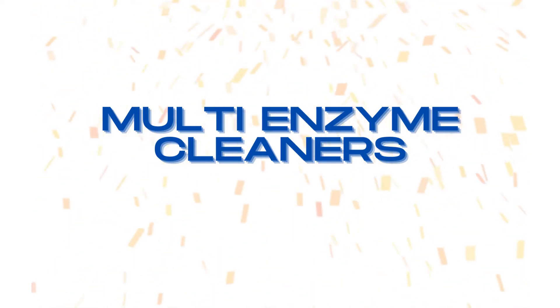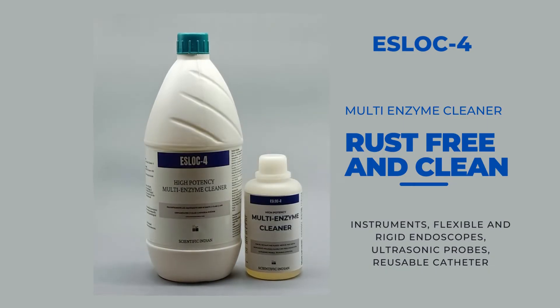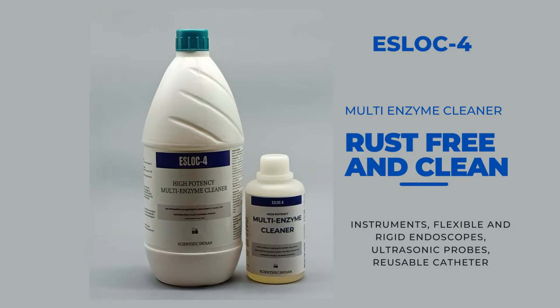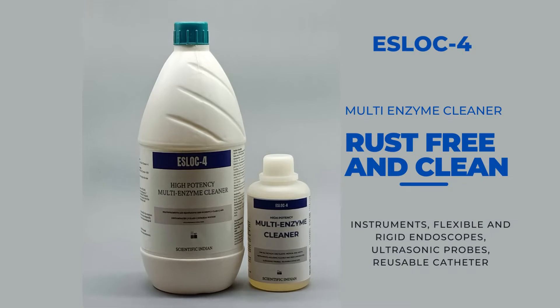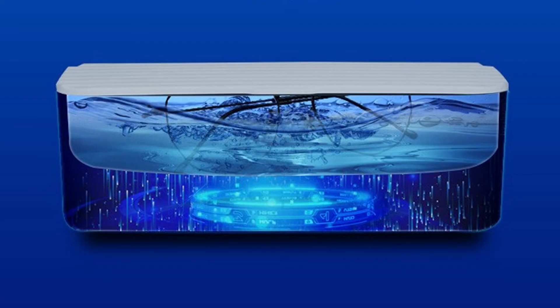Using an enzyme cleaner is an important component of the ultrasonic cleaning process. These detergent-based products should provide cleaning, be effective over a range of different water qualities, not harm the device while simultaneously protecting it from damage over time, be easy to rinse, and be compatible with the ultrasonic cleaning system.